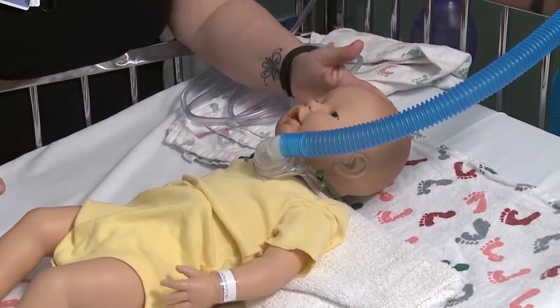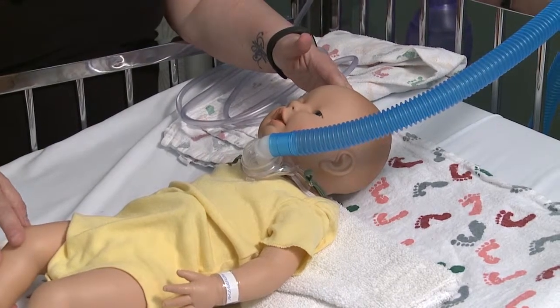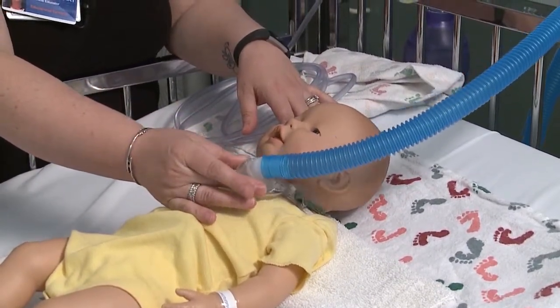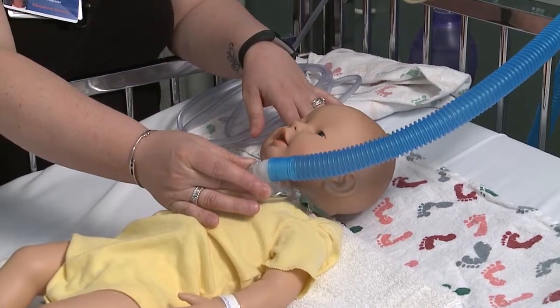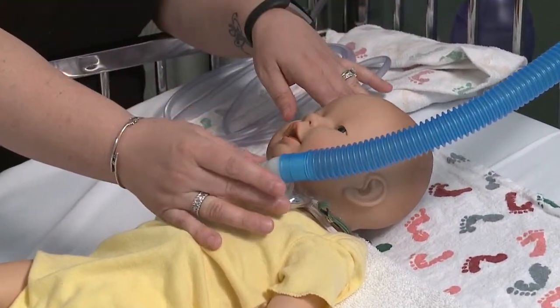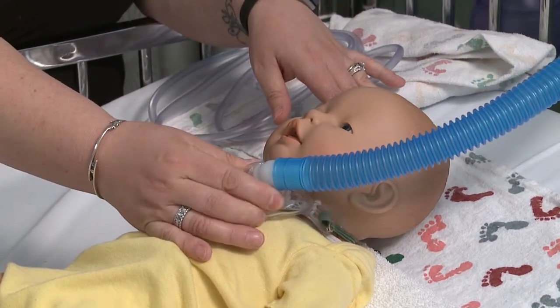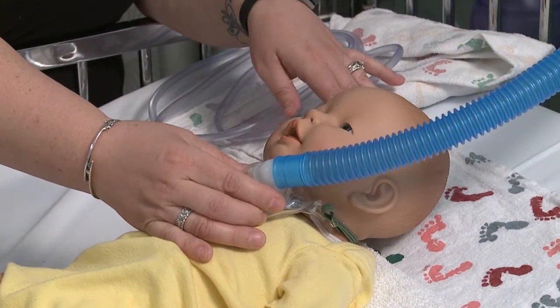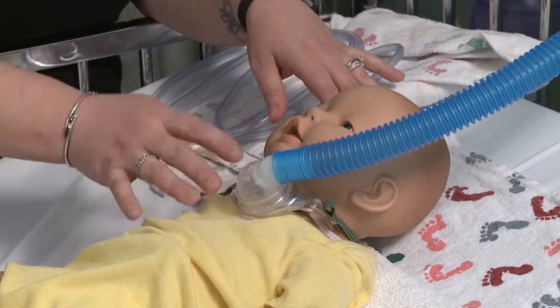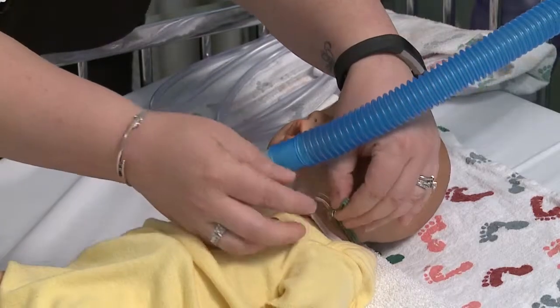When you're dealing with a child that has a tracheostomy, you might have an apparatus such as this, which is called an aerosol mask. This may be hooked to oxygen or to air, and its sole purpose is to provide heat and humidity to that artificial airway because you're bypassing your natural heat and humidity tract.